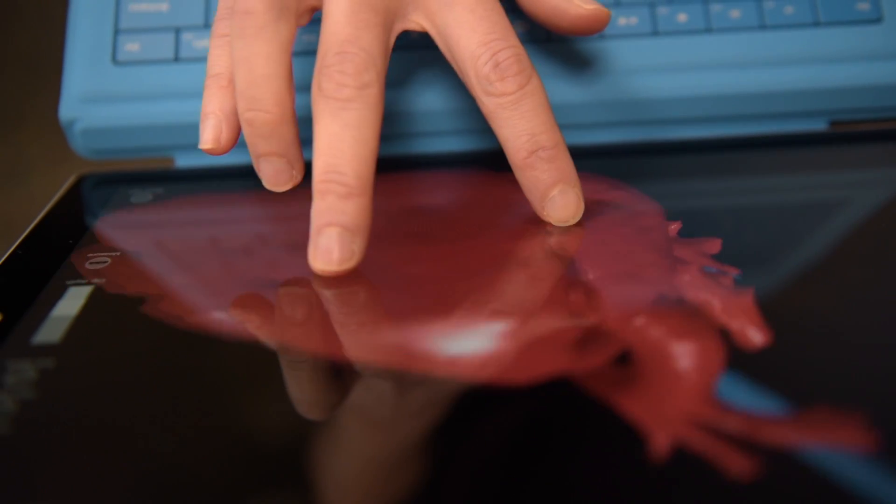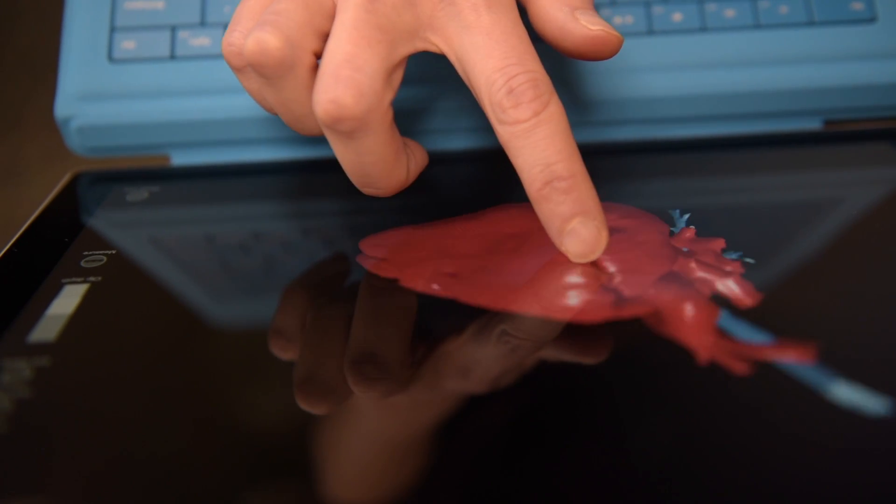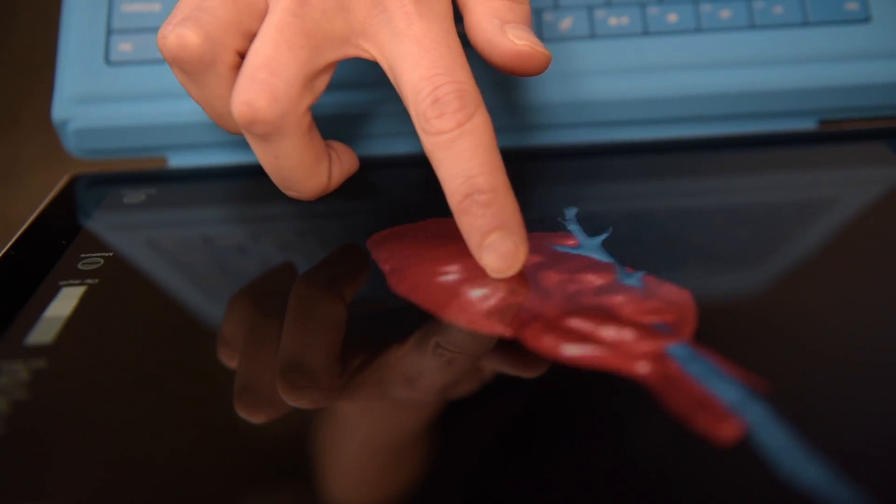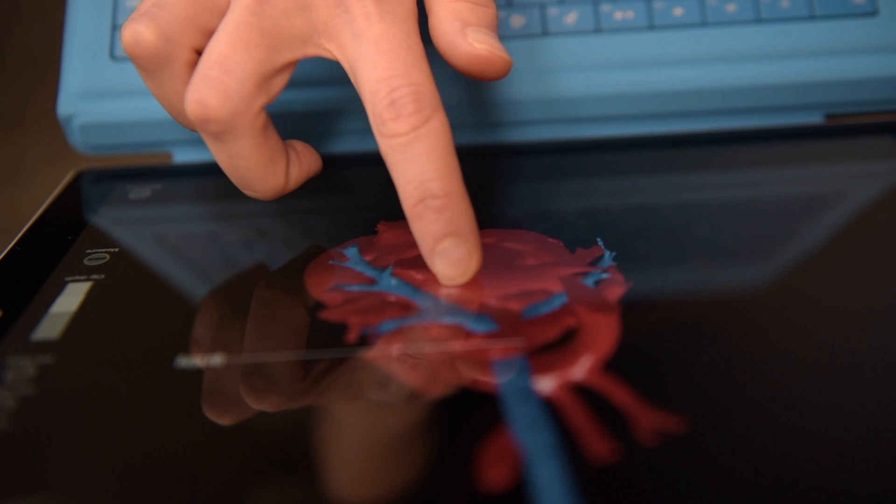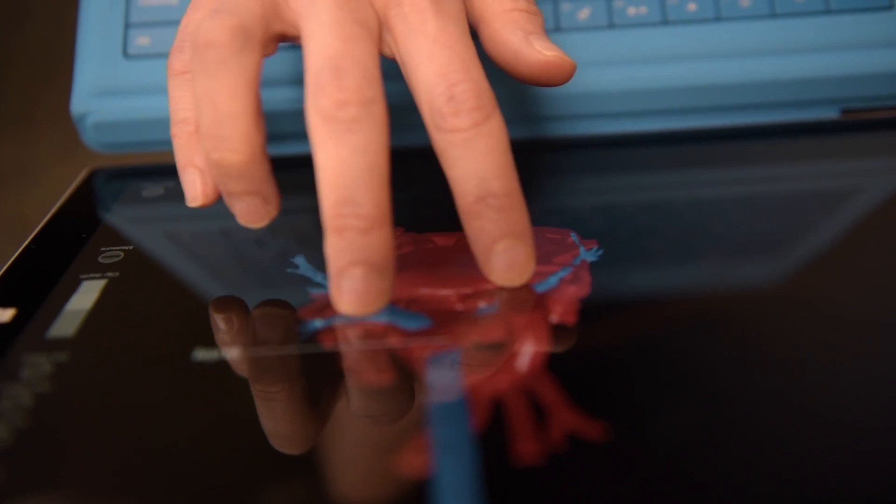We developed an app called 3D Cardiac Review. It's an application that we use in our 3D cardiac printing and modeling lab.